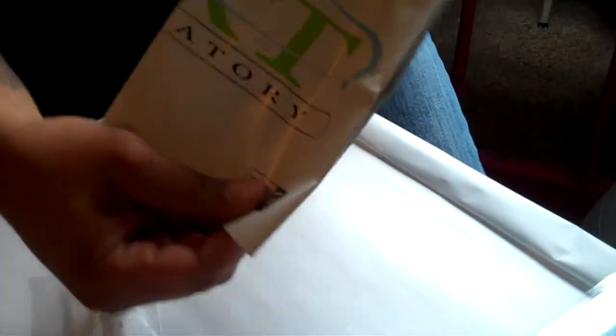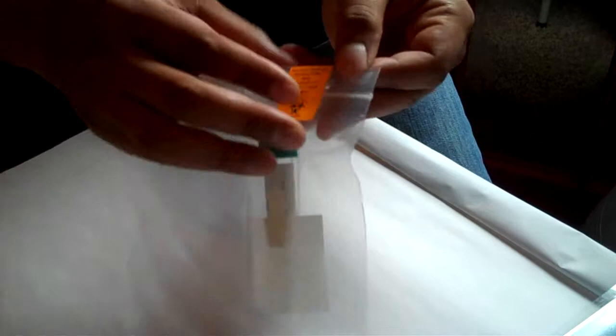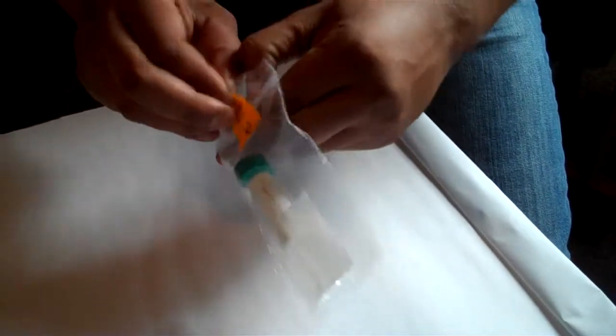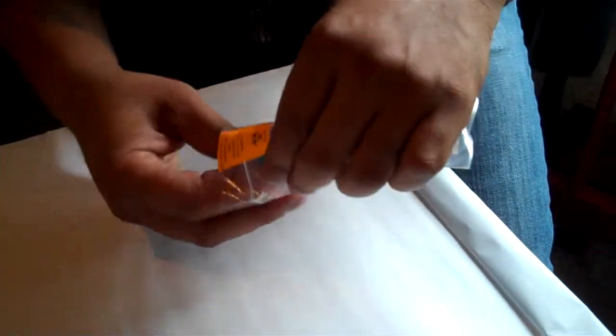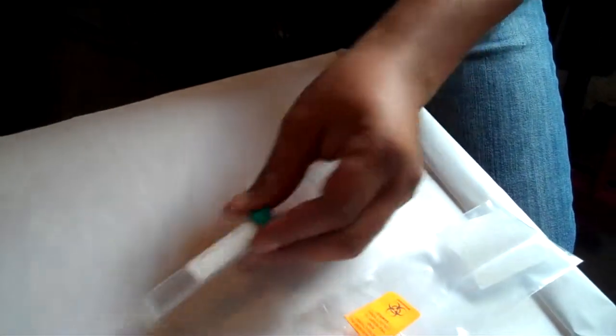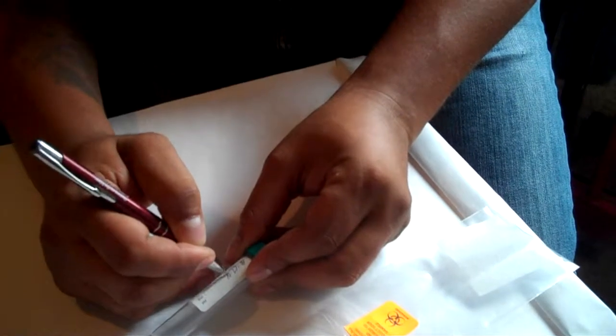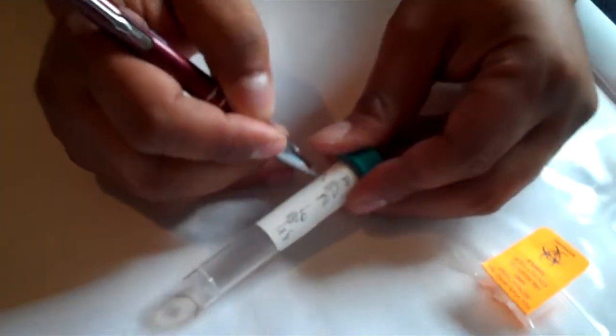And then you have your package that you're going to be returning your saliva samples in. Now, this is going to be a little gross actually in my opinion. First thing in the morning, you're going to have the whole morning mouth thing going on. You can't drink any water. You can't eat any food. But what you want to do is open your sample. And you go ahead and mark your day on there. And the time. And then you go ahead and put your name on there.